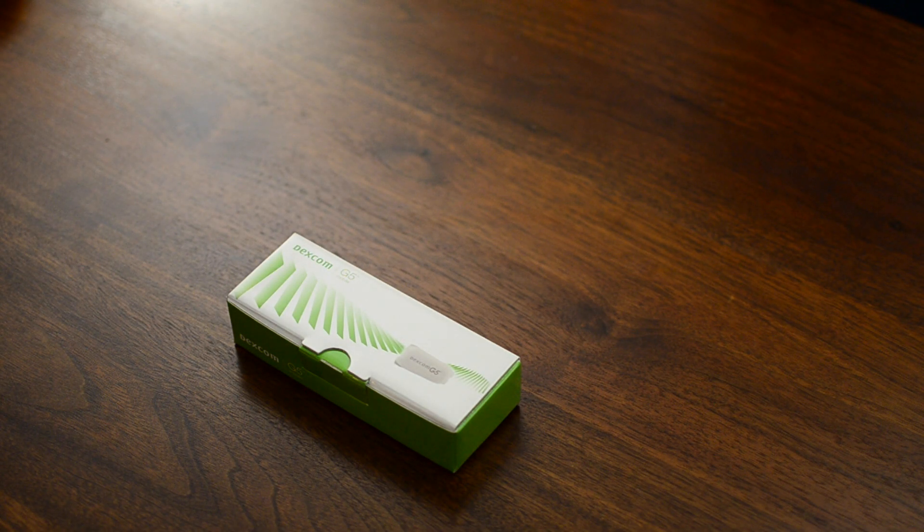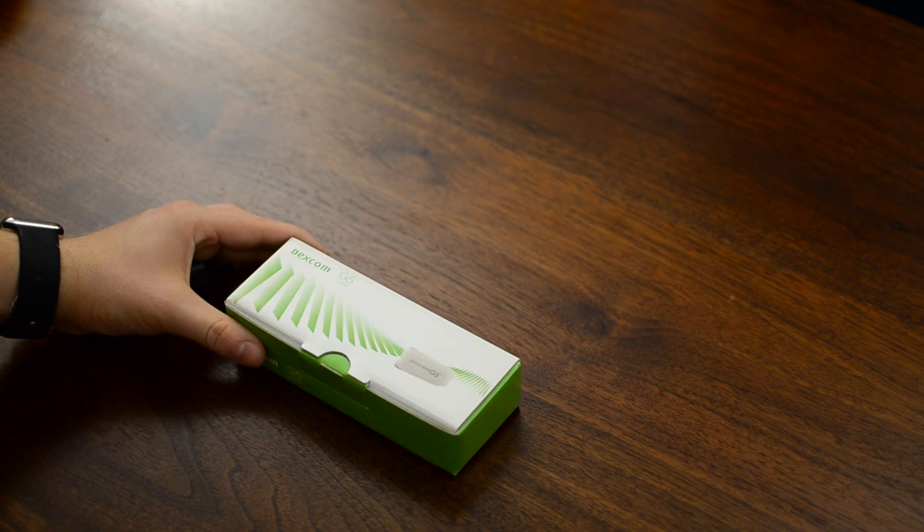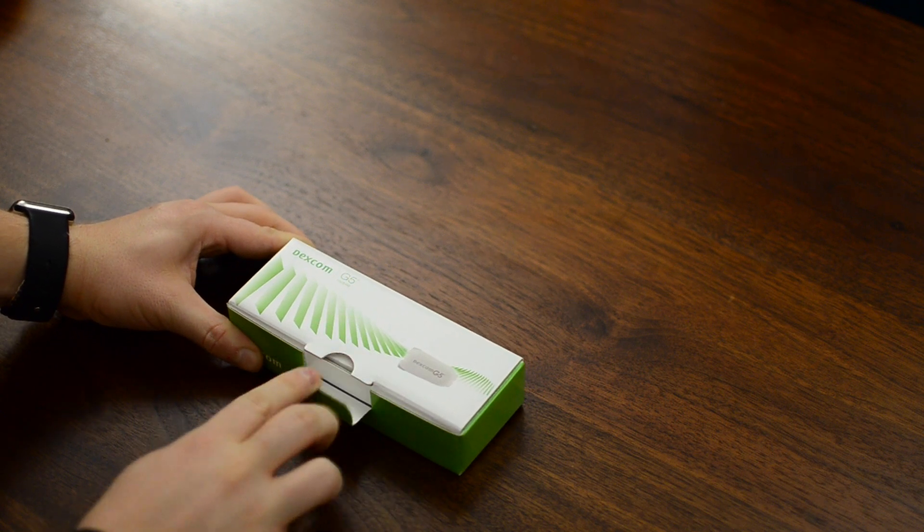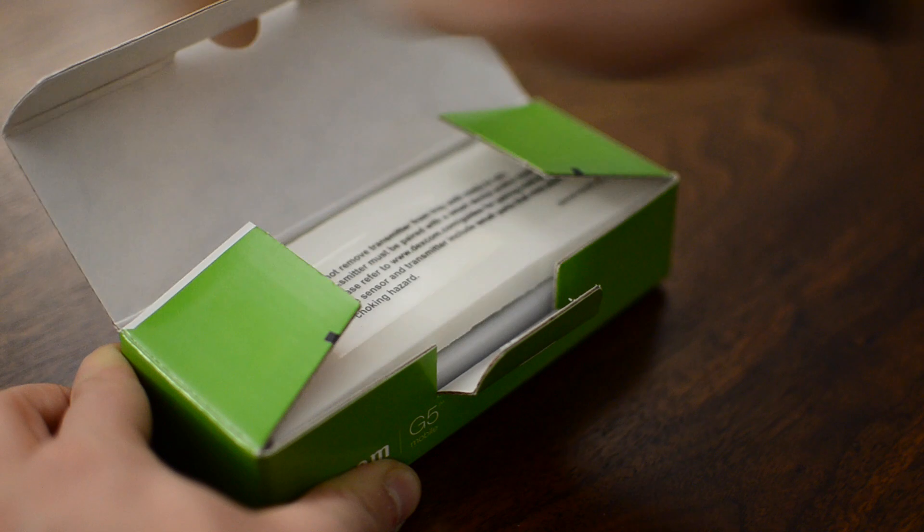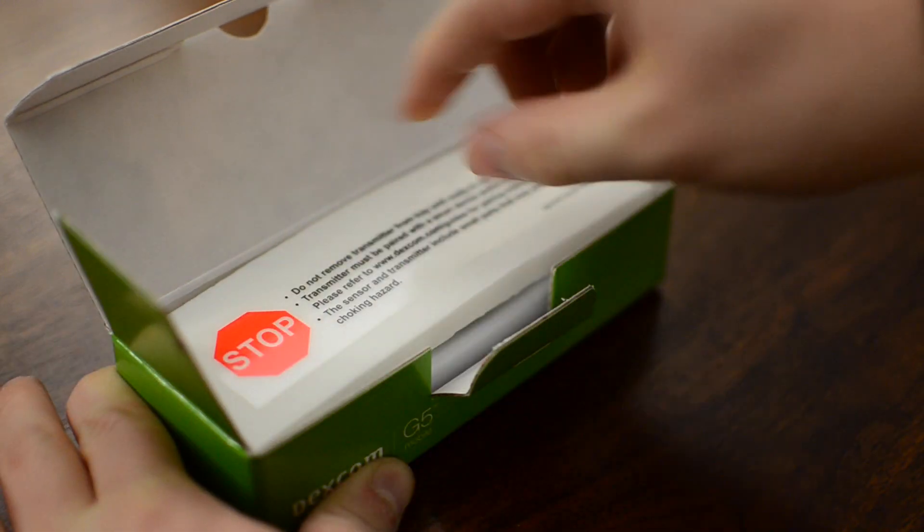Hello friends, it's Andrew from MAO Magic and I have the newly released Dexcom G5 Mobile CGM. They're billing this as the first and only completely mobile CGM.